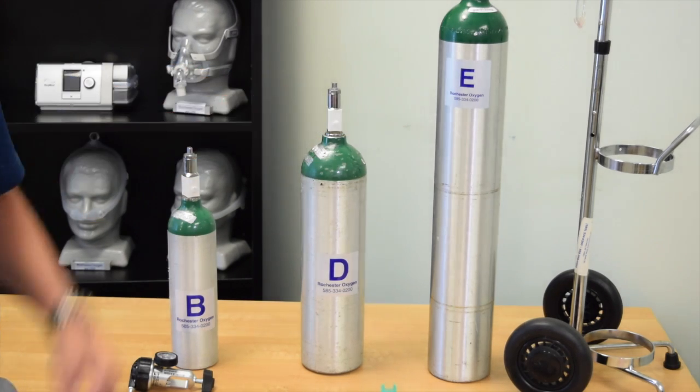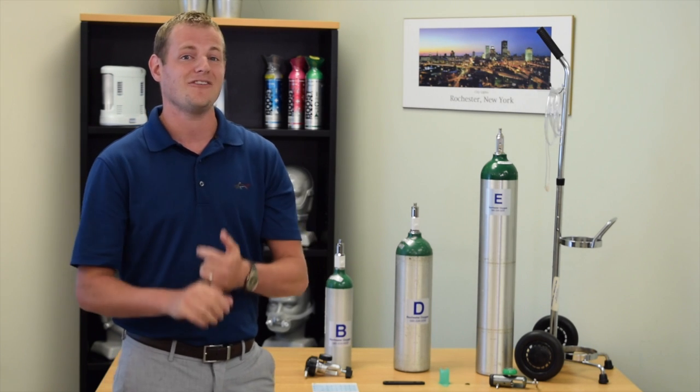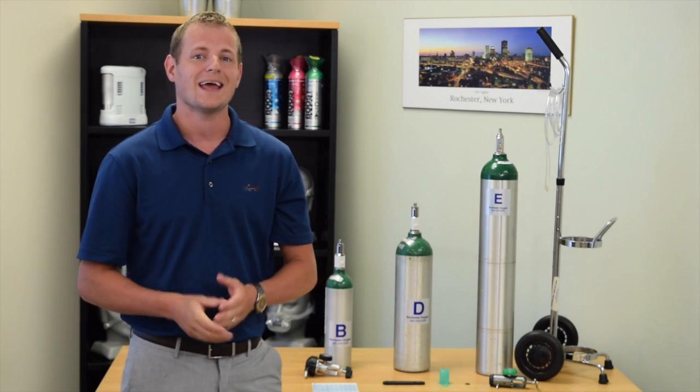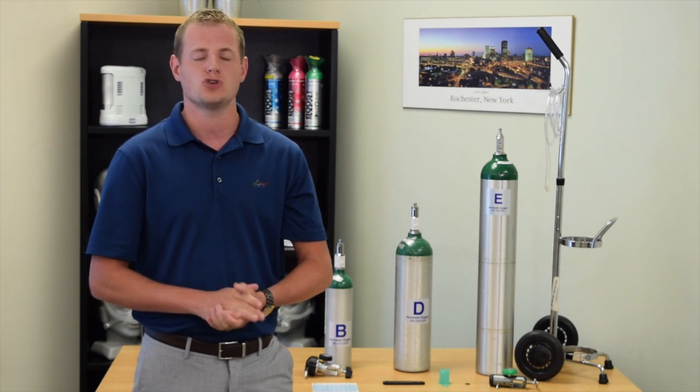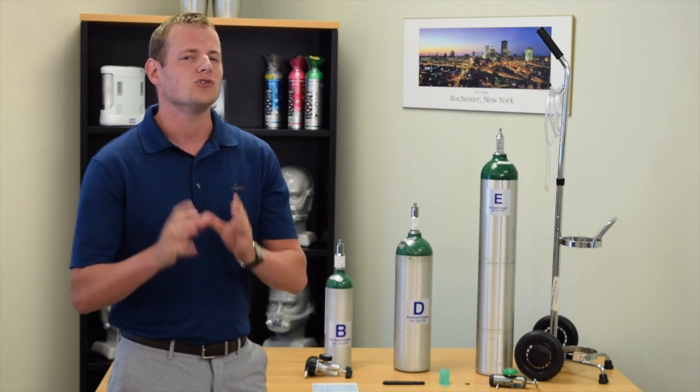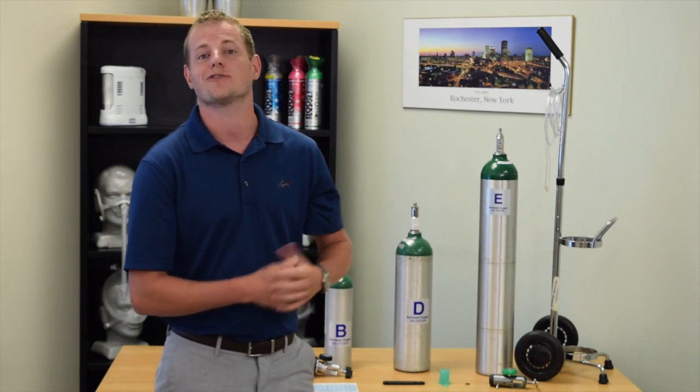The E tank is the largest of the tanks you'll see in the home. It's the heaviest tank, weighing about 11 pounds when full and lasting for about five hours on a flow of two liters per minute. Because of its heavier weight, you typically will see this with a cart as well, which makes it easier for transport.